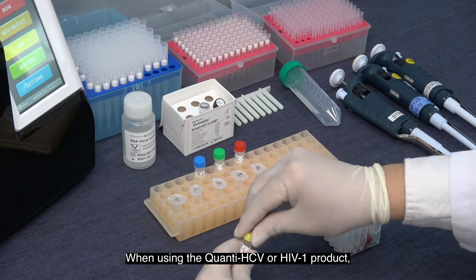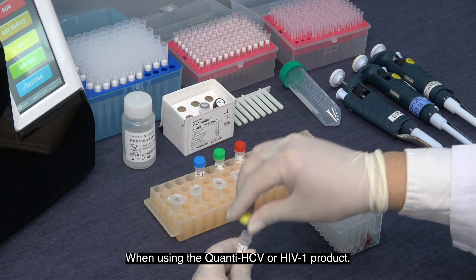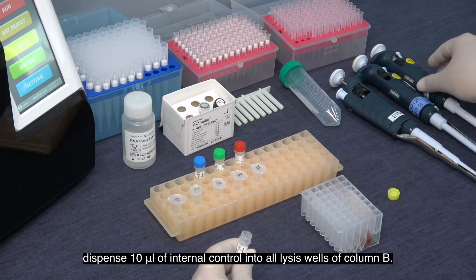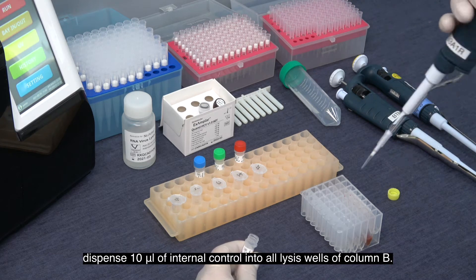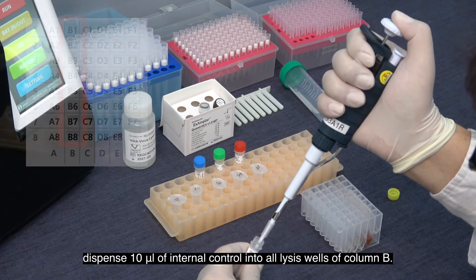When using Quanti HCV or HIV-1 products, dispense 10 µL of internal control into all lysis wells of column B.